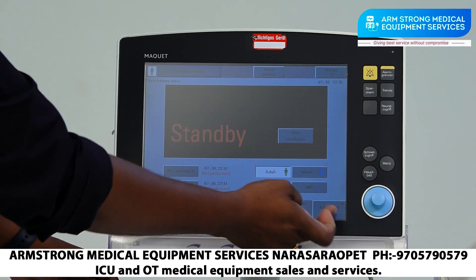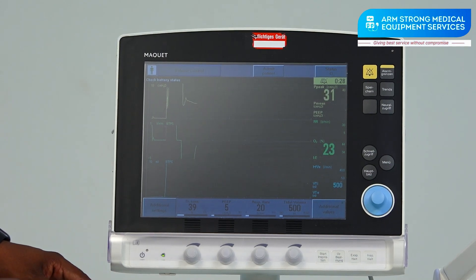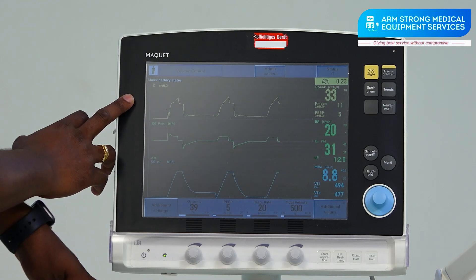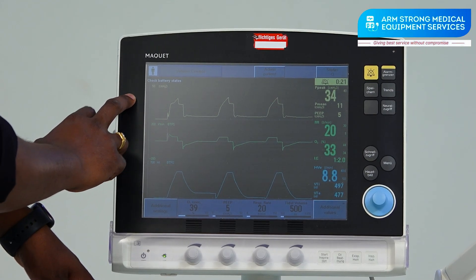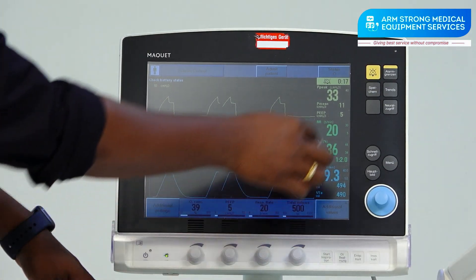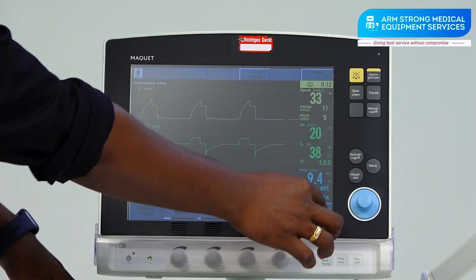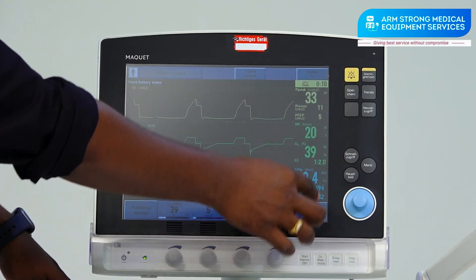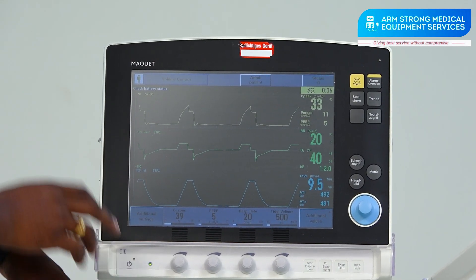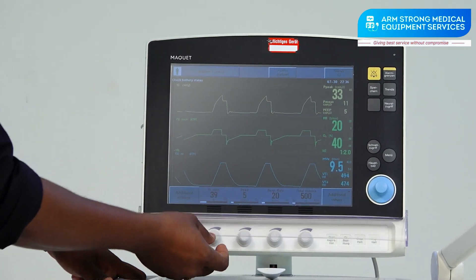Now, after starting ventilation, the display is divided into three areas: the waveform field, the set field, and the patient digital field where expiratory and full patient data is shown as digit values. You can see pressure, flow, and volume waveforms, along with the set data.